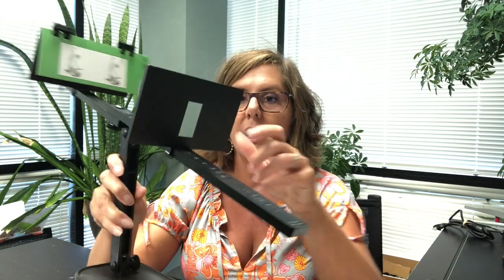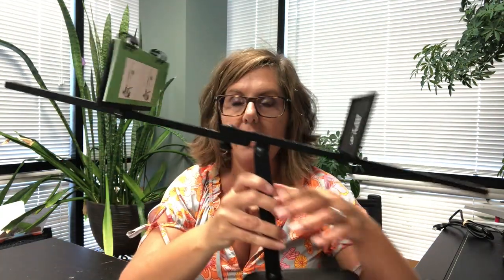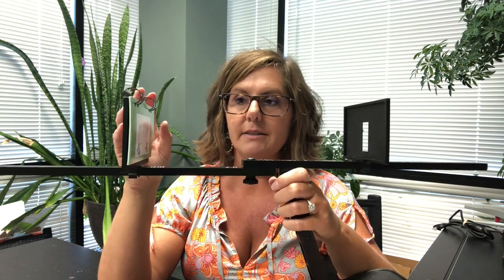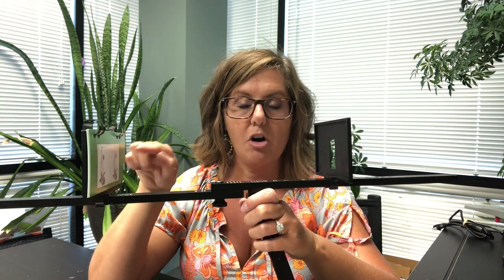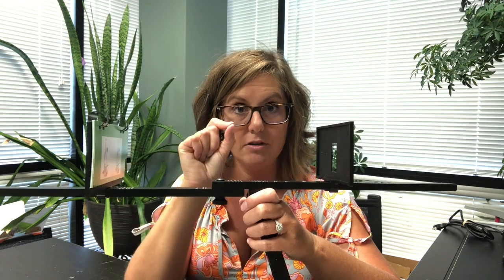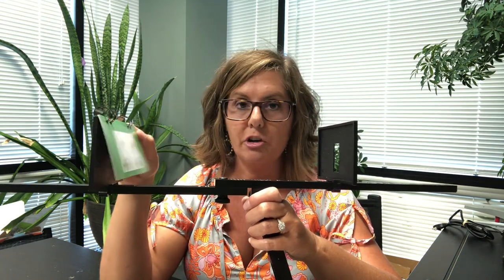There are several components to this. It has a little platform, a window — there's a single window and a double window — and then it has a card set on the back. The card set has a bunch of different pictures on it, and as you look through the window you'll see the pictures. Your eyes will align and you have to put it together to see it as a single, solid image.